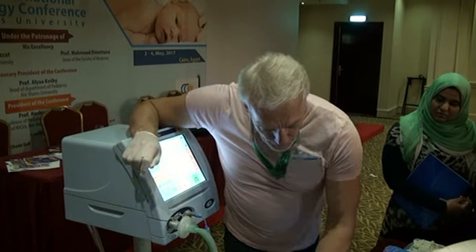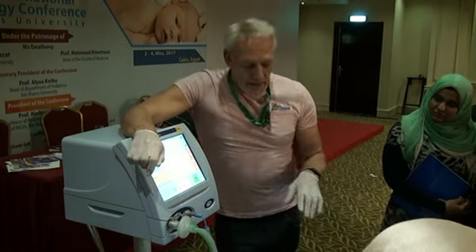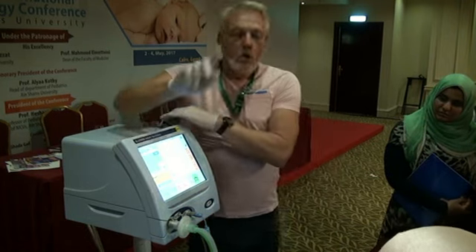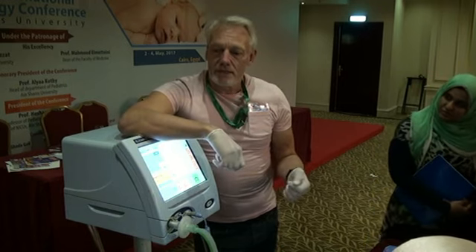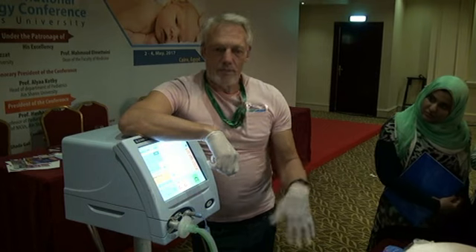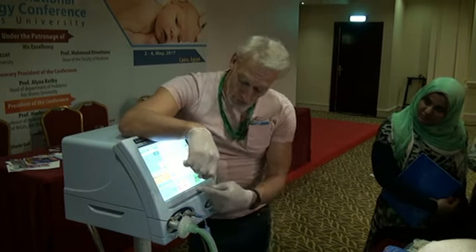But even by putting the baby back where it was, it's taking time to inflate. So, what can you do? What would you do if these were really sick lungs? You've, for whatever reason, disconnected or re-intubated, and your lungs are down, and your baby's desaturated, and they're very stiff lungs, and you put your baby on your pressure.